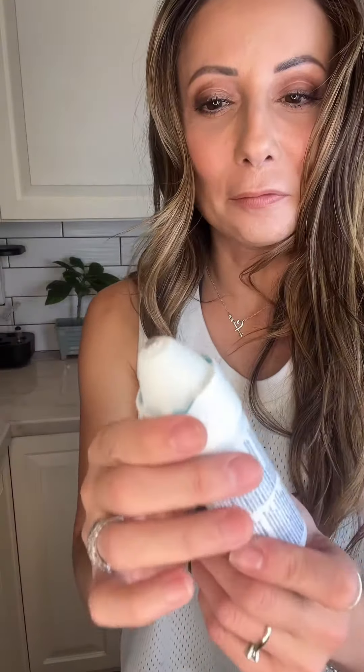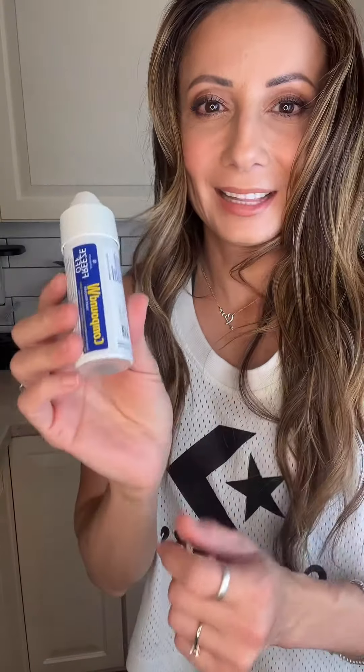It's 20 seconds for your hand and 40 seconds for your feet. I already felt it — it's super cold. It's supposed to kind of freeze off the wart area, so let's see if it works.